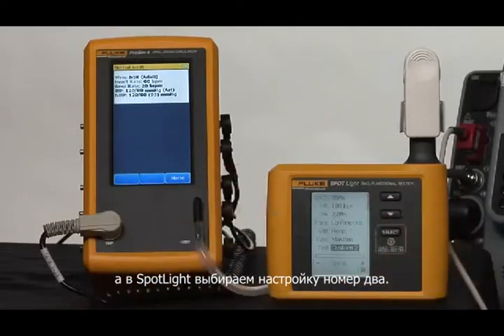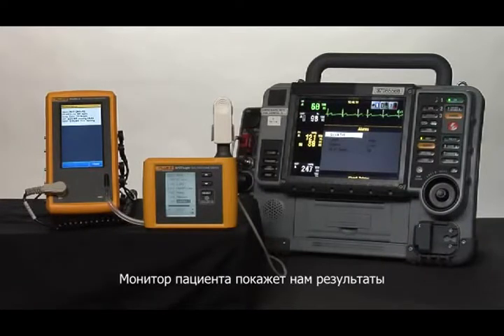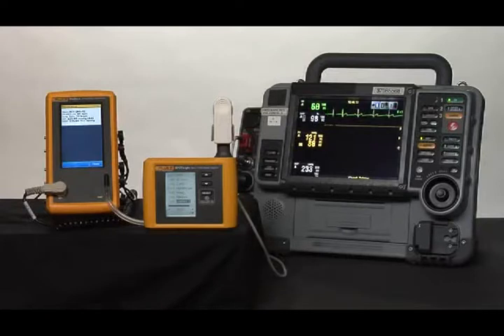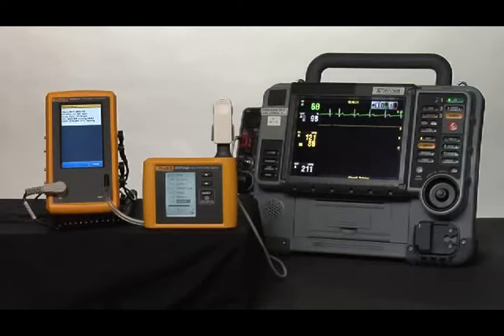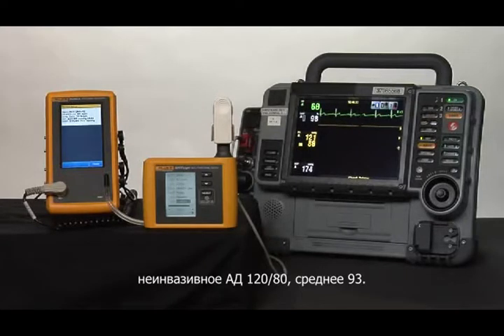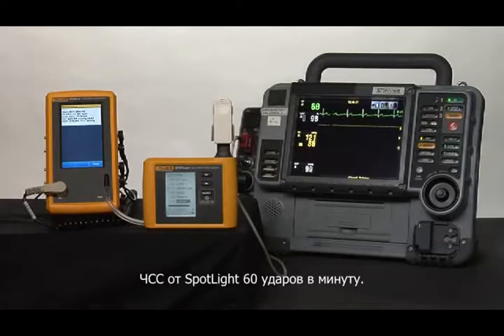On Spotlight, we'll pick custom 2, start another NIBP reading. And the patient monitor will display its values. We're comparing those against the displays on both ProSim 4 and Spotlight so that we have our waveform, normal sinus rhythm, a heart rate of 60, a respiratory rate of 20, an IBP, invasive blood pressure, of 120/80, an NIBP of 120/80 with a mean of 93, and our oximeter value should be 98% and a heart rate from SpO2 of 60 beats a minute.